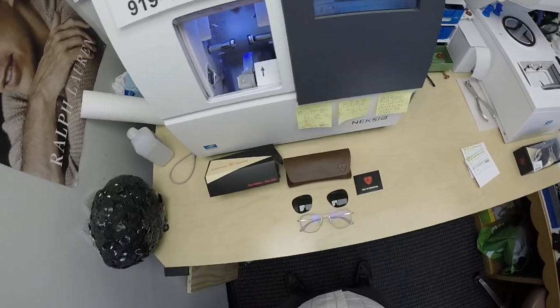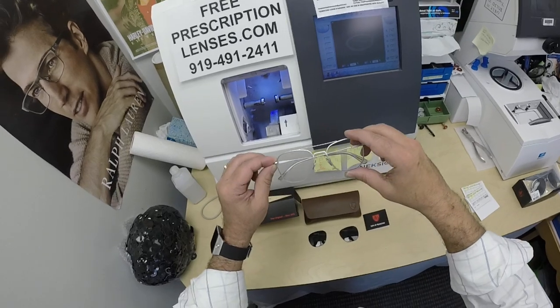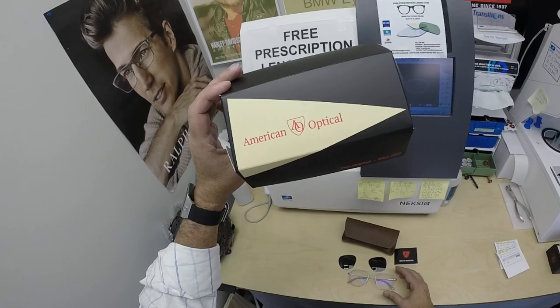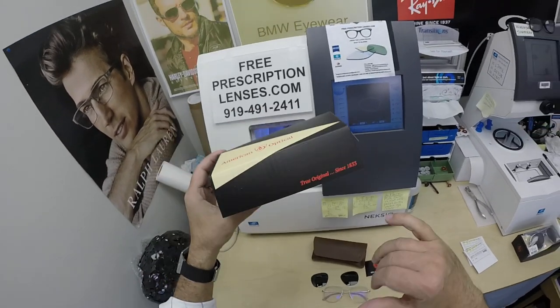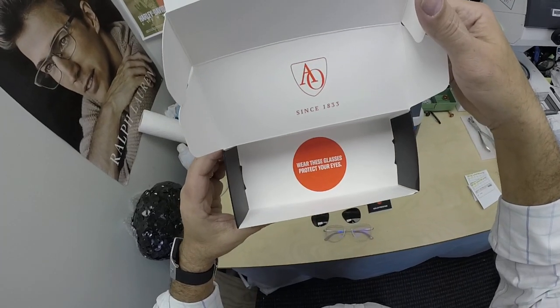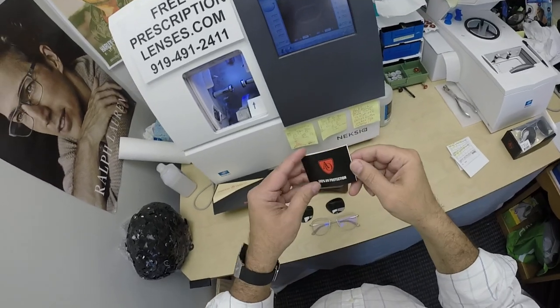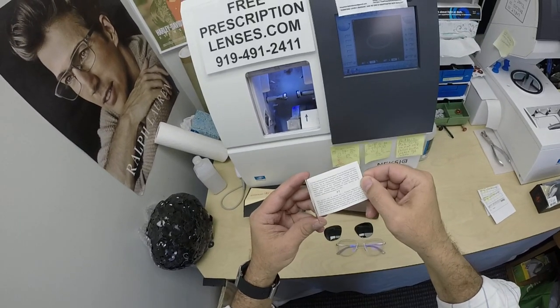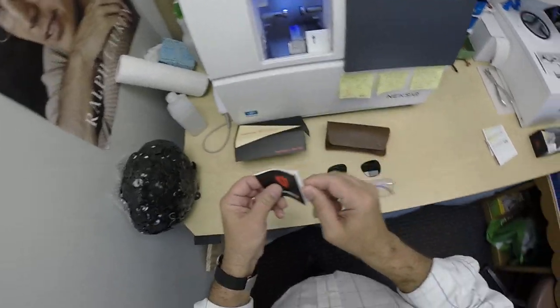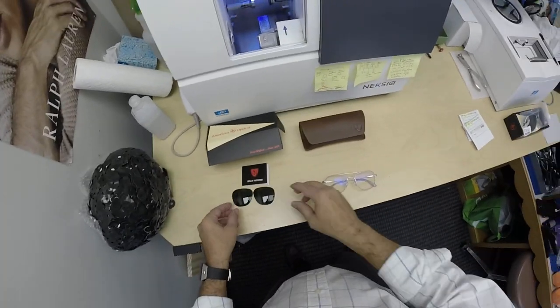I just want to show you John's American Optical Pilot. These are the classic frames. This is American Optical, one of the oldest frame manufacturers in the United States, a true original since 1833. You've got the big red circles saying wear these glasses to protect your eyes. Of course, you're going to get all the original packaging from American Optical, including the packet that in every language possible talks about these lenses that I took out to install his prescription lenses.